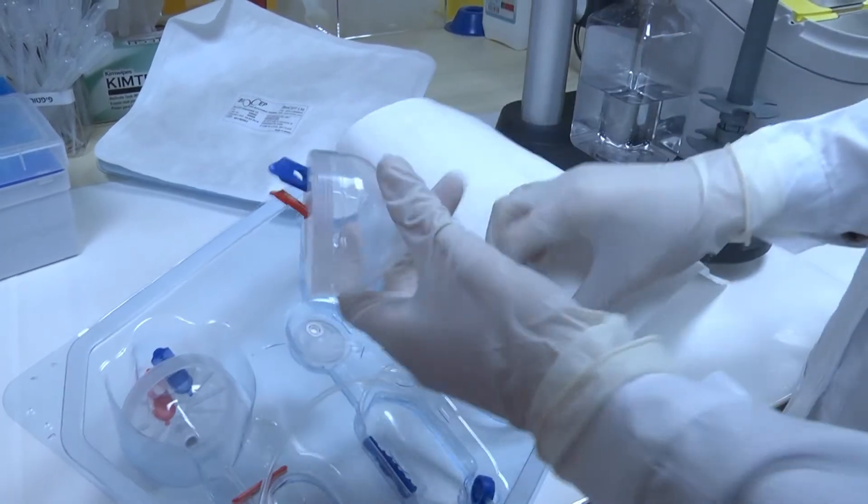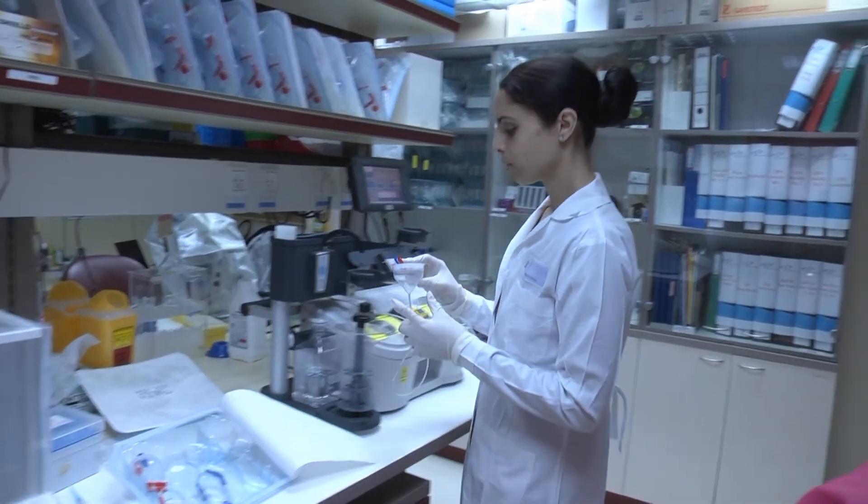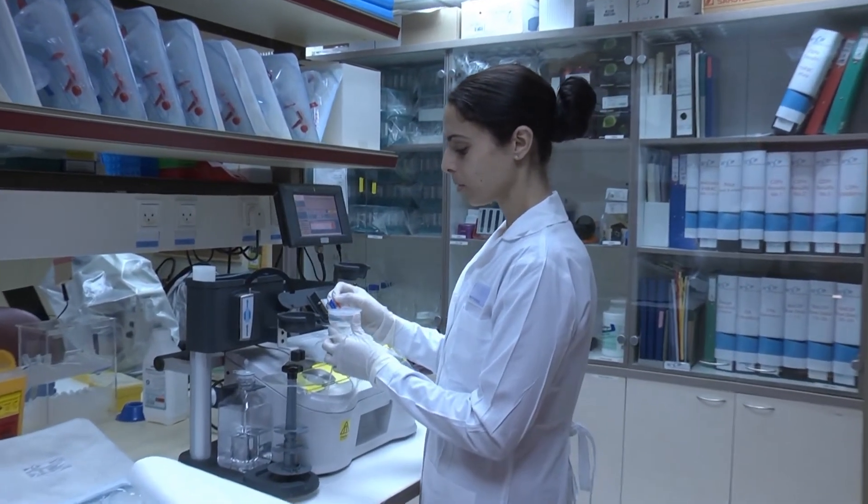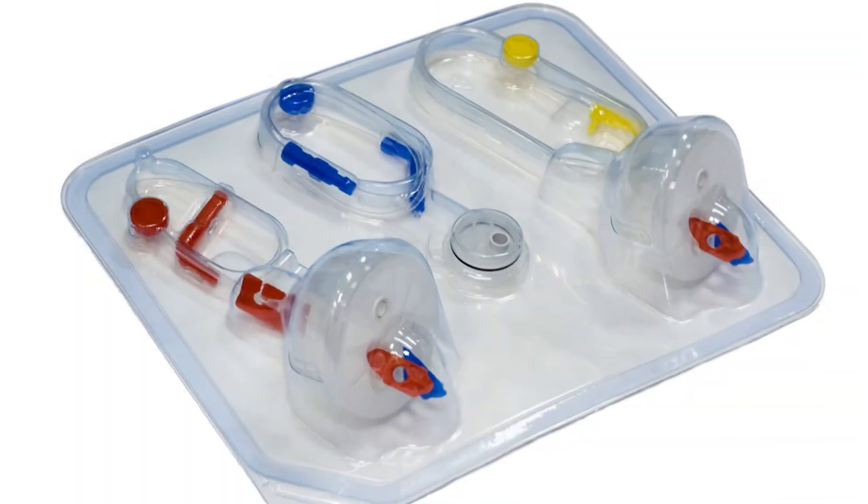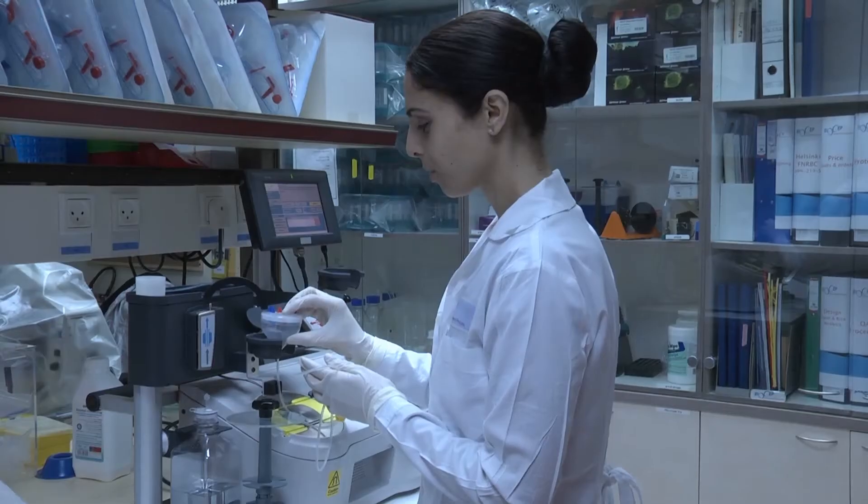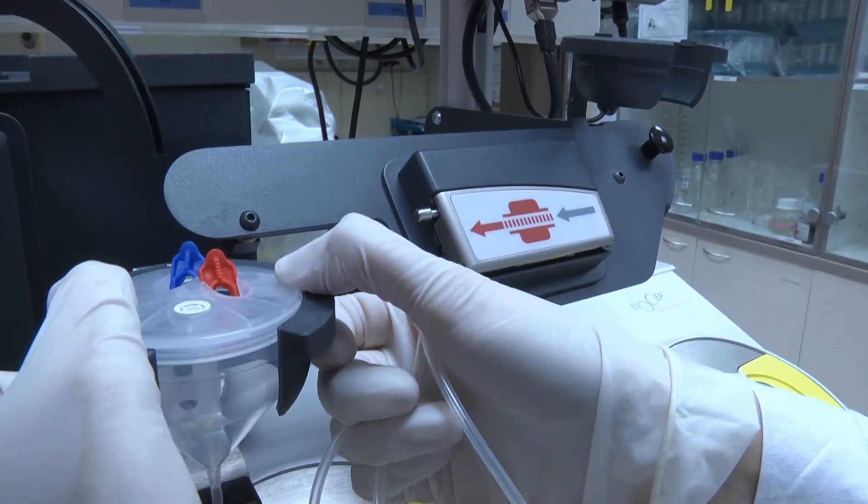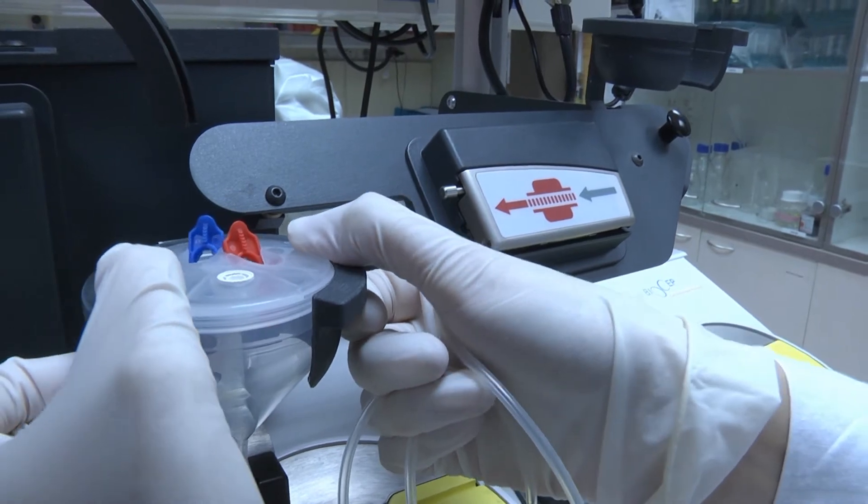After sample preparation, simply install the sterilized medical grade SAPIR disposable kit. The kit comes with a specialized buffer bottle cap, specimen and mixing chambers and silicone tubing. The chambers and tubing easily click into place in the color-coordinated designated regions.